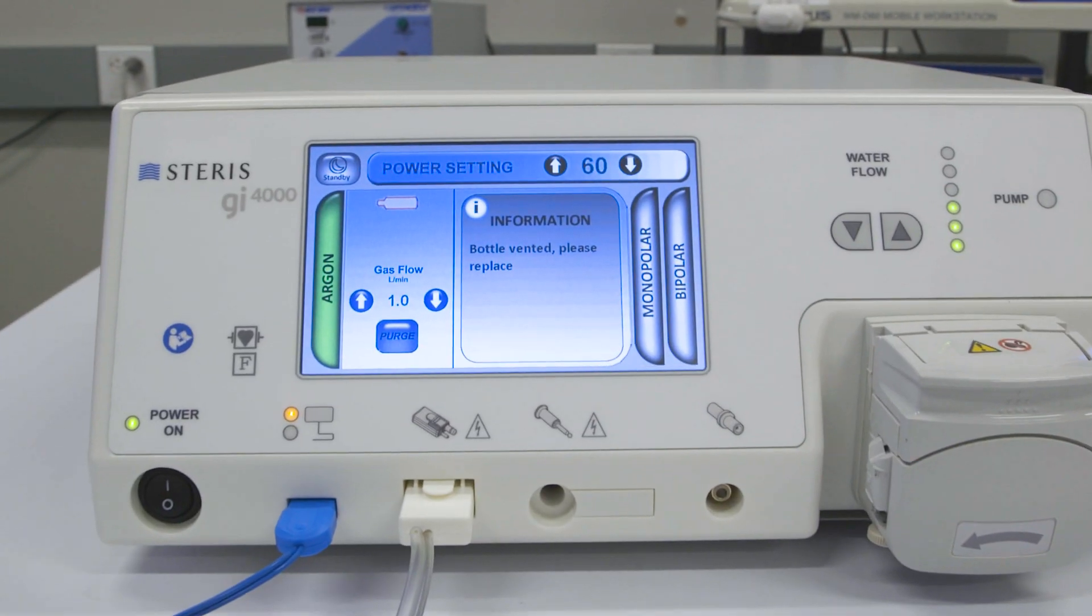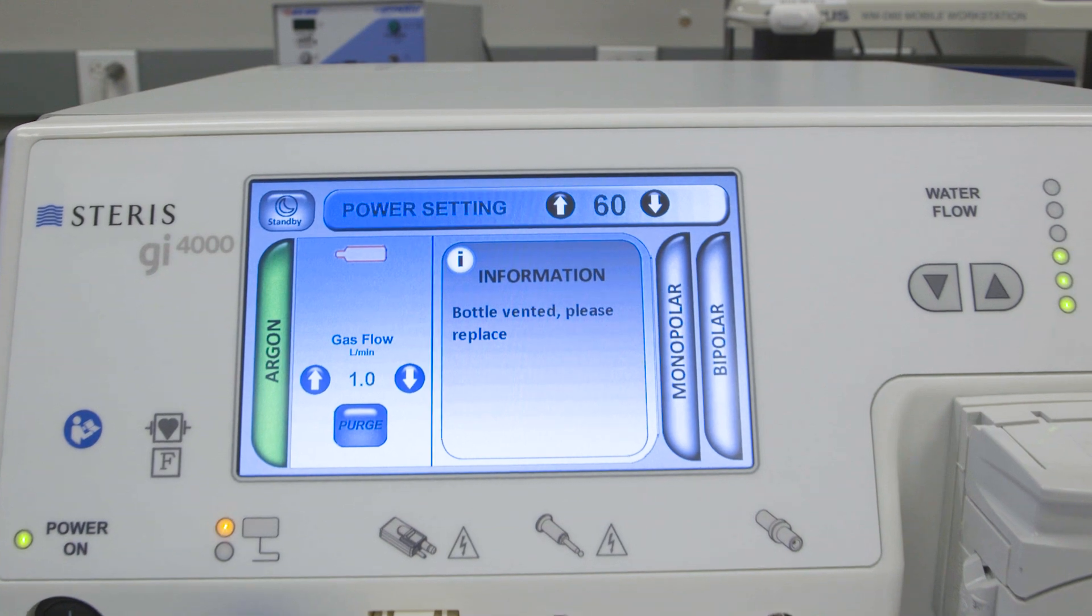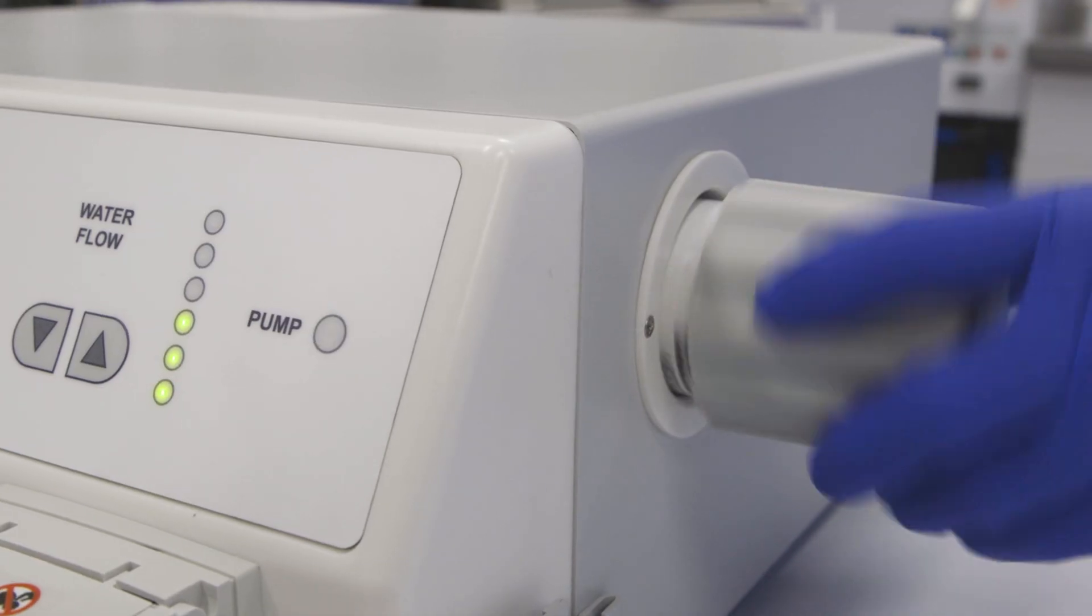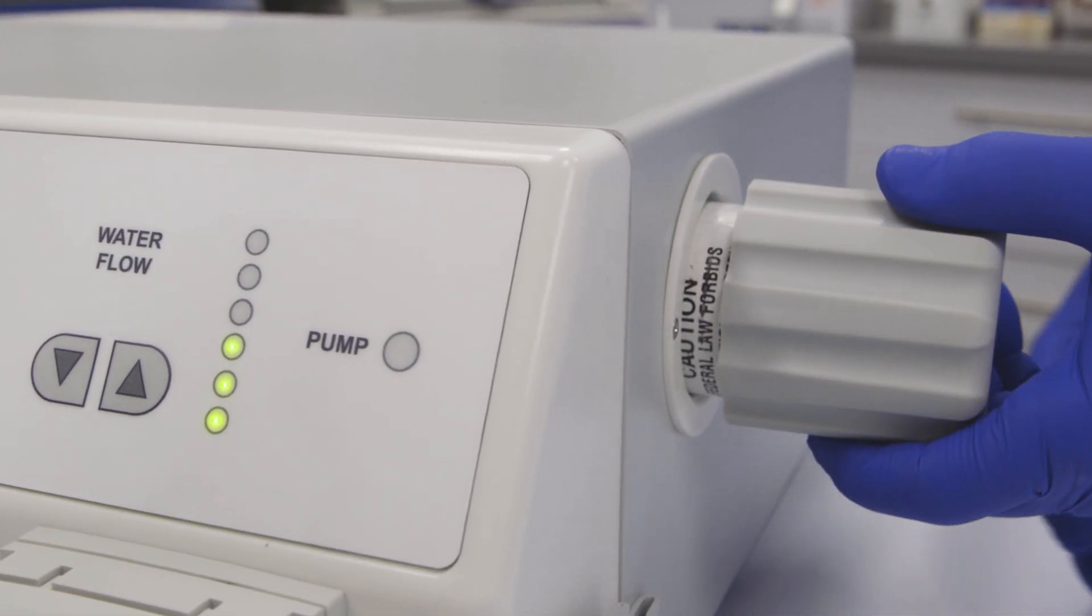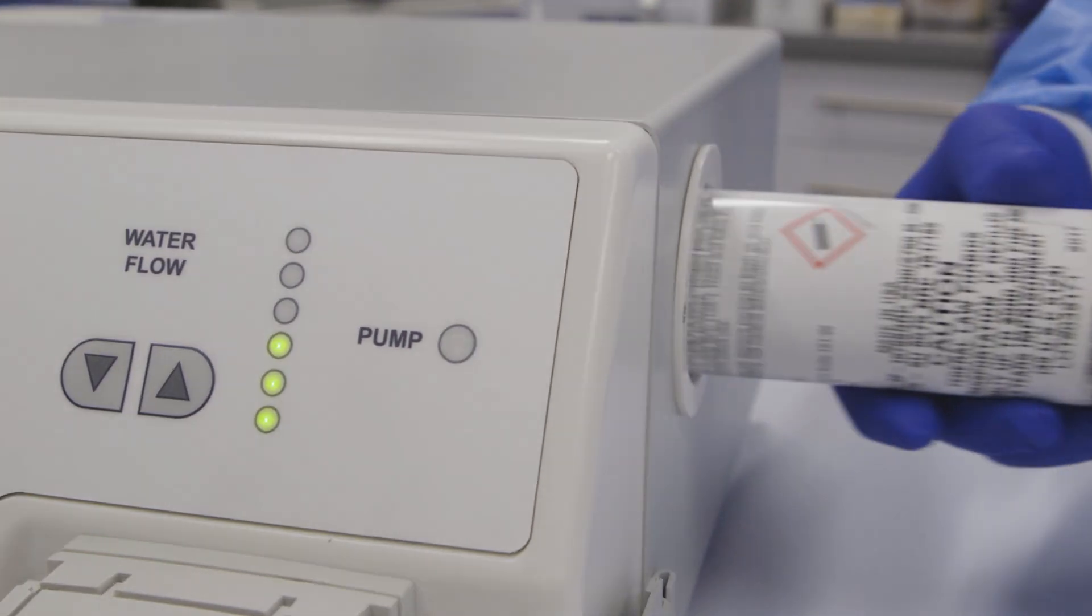The user vented the argon bottle and forgot to replace it. To resolve this issue, uninstall the vented empty argon gas bottle and install a new full argon gas bottle.